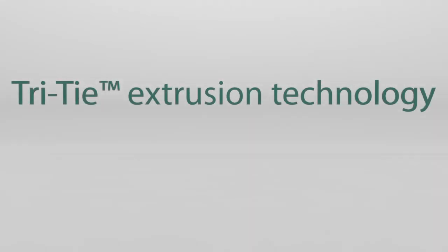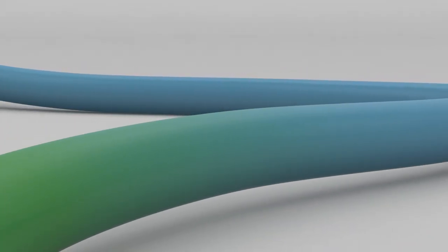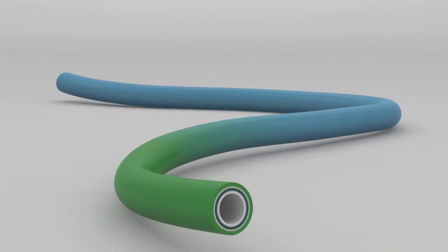Putnam Plastic's Tri-Tie Extrusion Technology revolutionizes the manufacturing of guide catheters, resulting in enhanced product performance, improved quality, and lower costs.